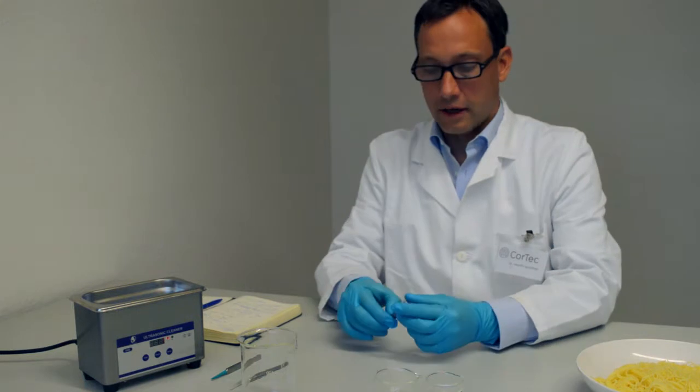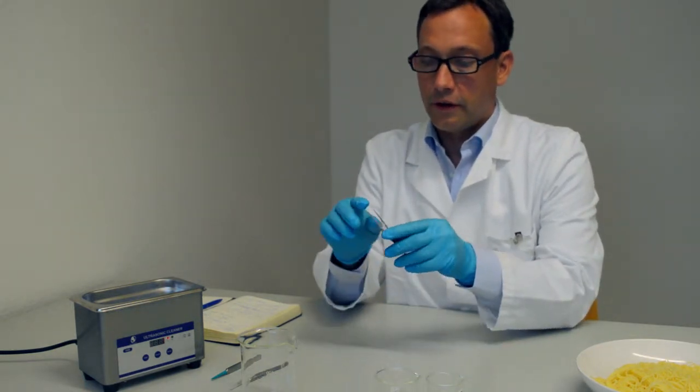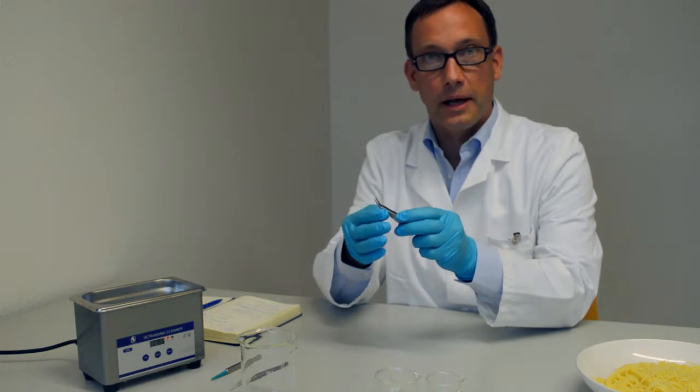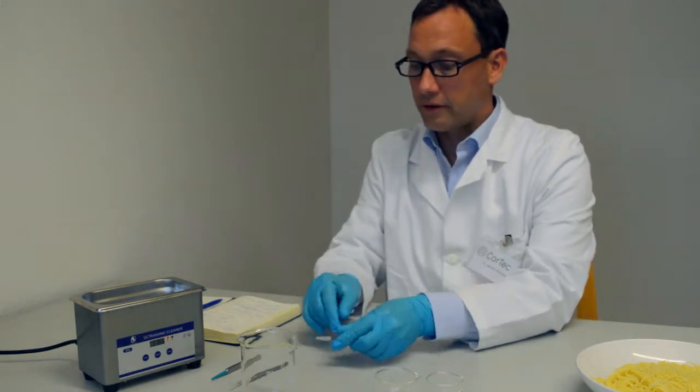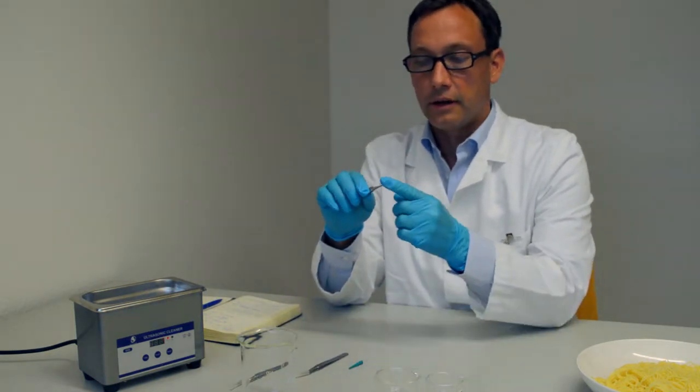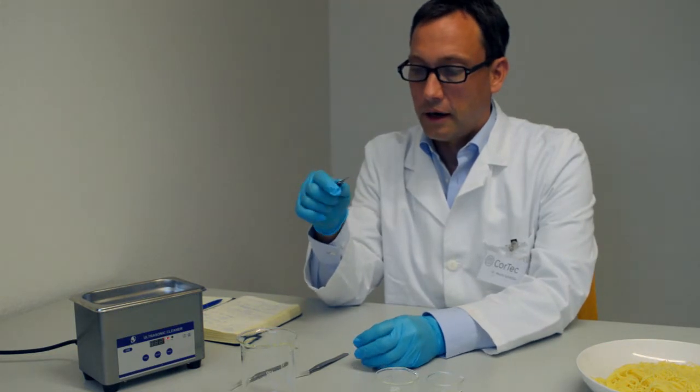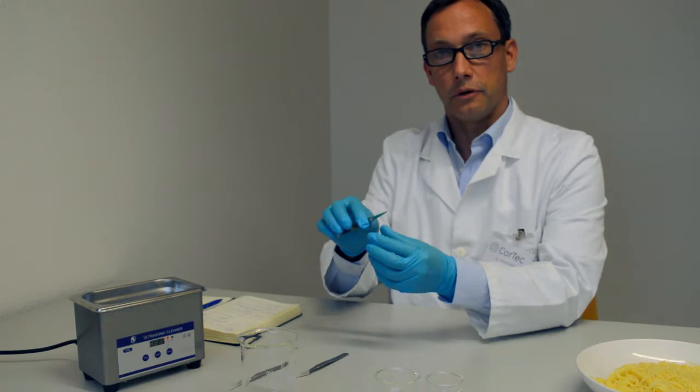For handling our cuff electrodes, we recommend using tweezers with flat, rounded tips because then you don't risk damaging the electrodes. When you're using very pointy tweezers, you run the risk of poking through the silicone. So we don't want to use those.